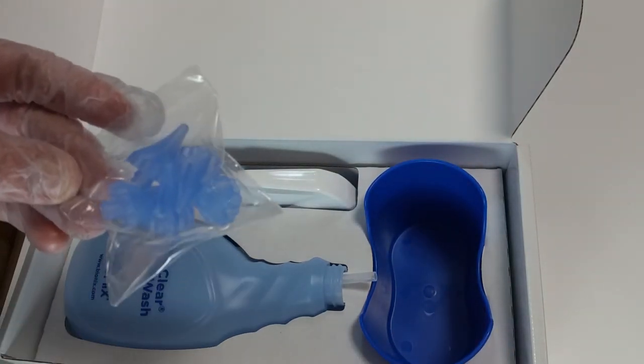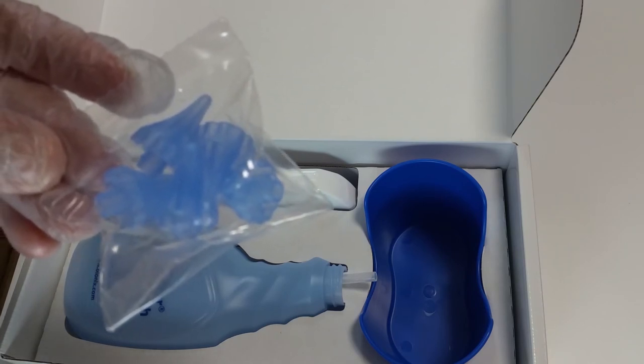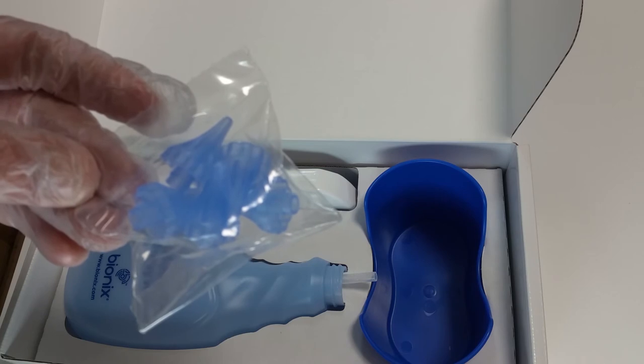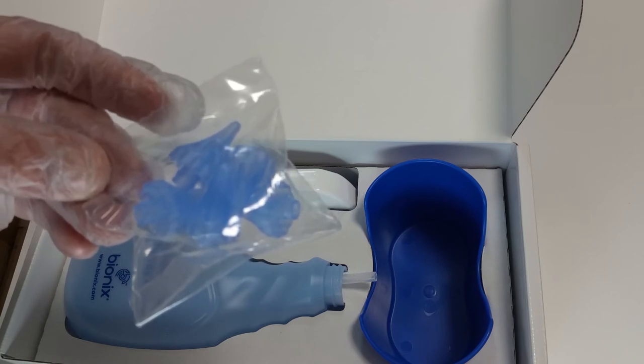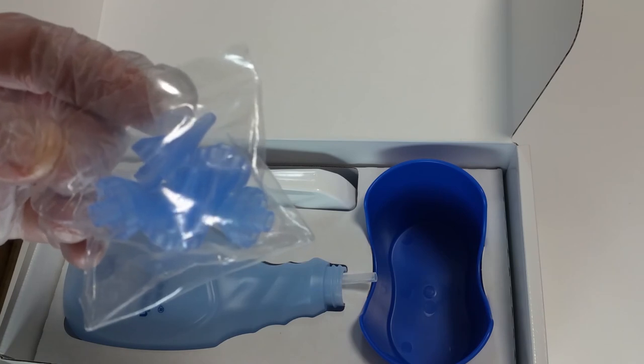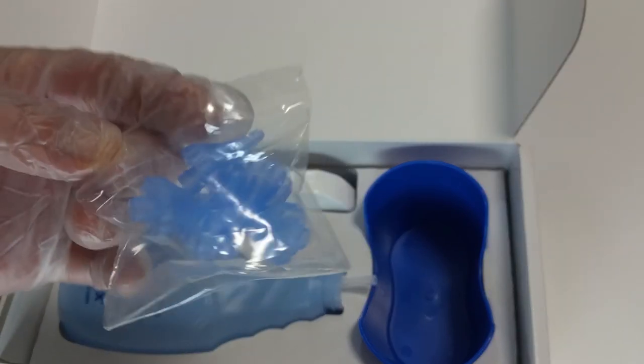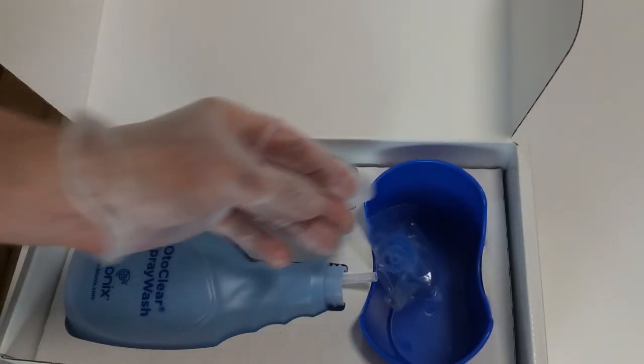Probably the key to the kit are the tips. They're designed so they spray the water out at a 30-degree angle to stop the water from directly impacting on the tympanic membrane. Also, the shape of the tips helps prevent over-insertion of the tip into the ear. Pop them back in.